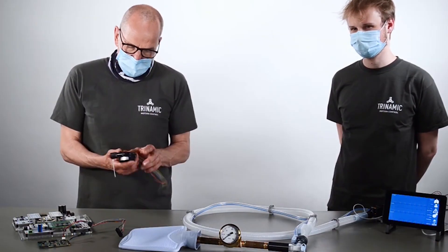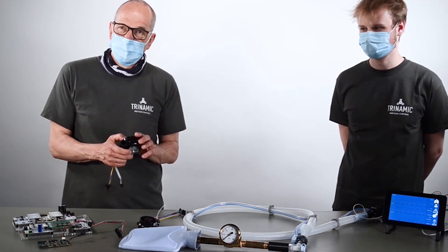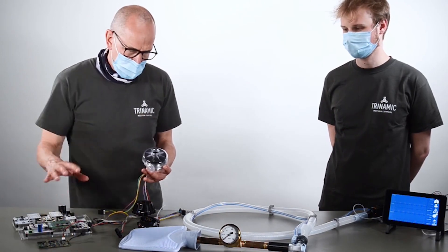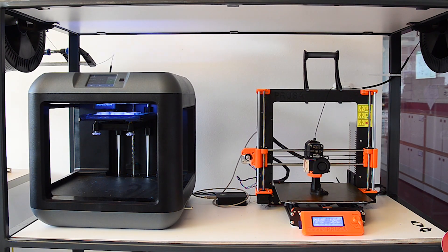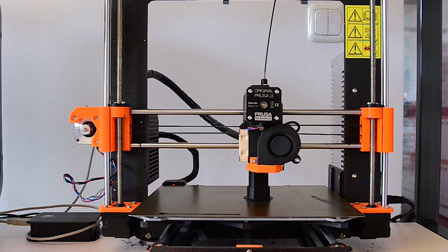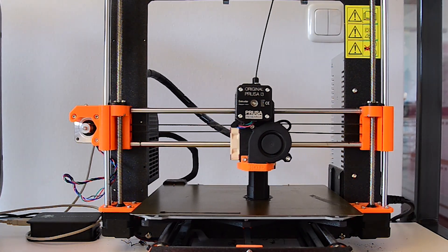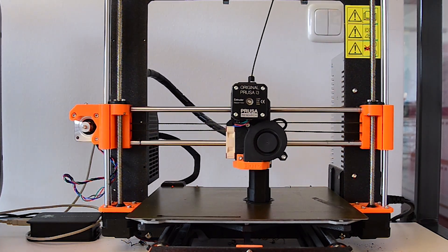We tested turbines of many manufacturers to see if they could provide sufficient pressure and flow. We designed a mechanical assembly and printed prototype after prototype, and we experimented with as many different types of off-the-shelf patient tubing as we could get — all of this in parallel.